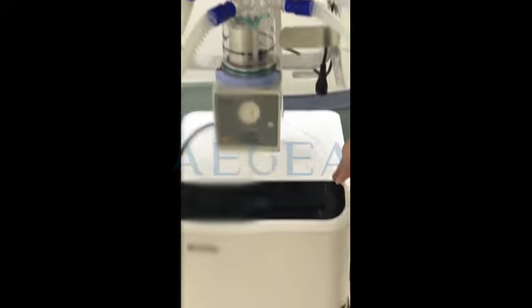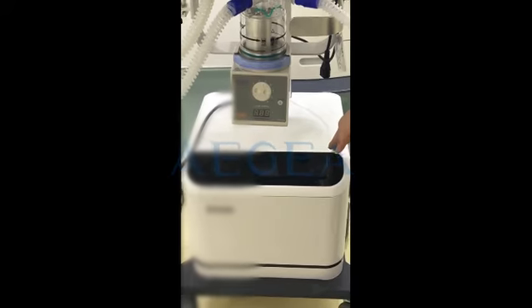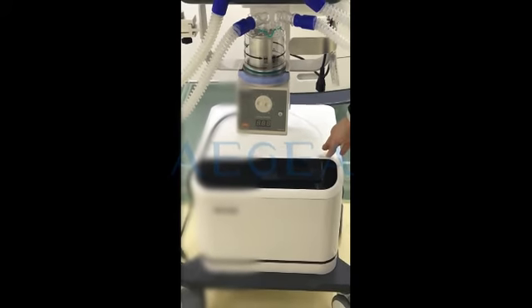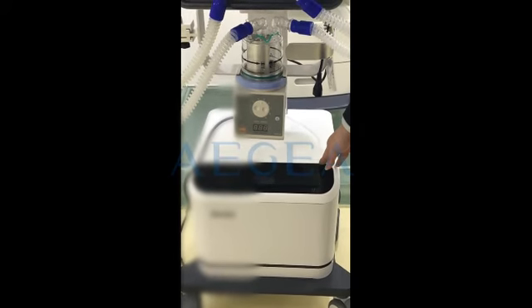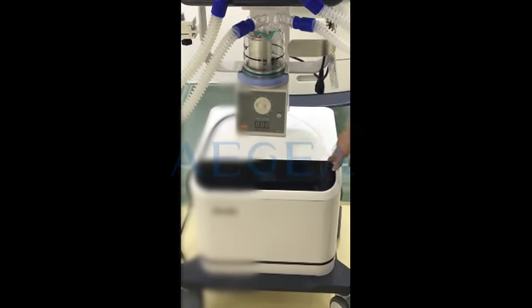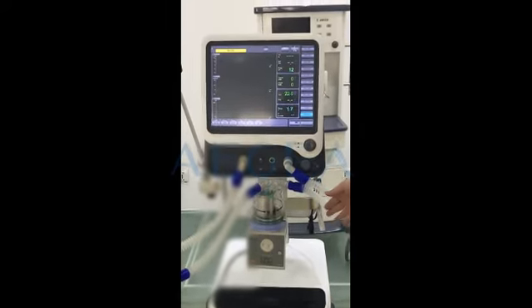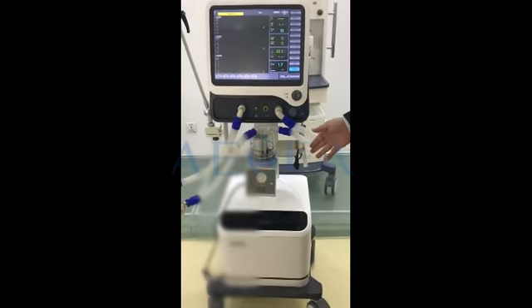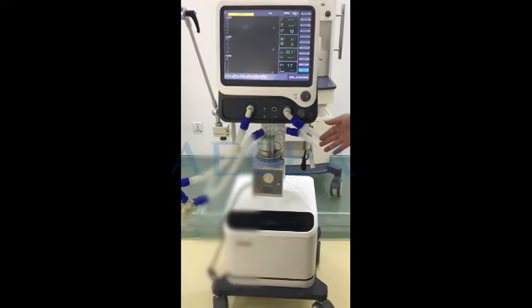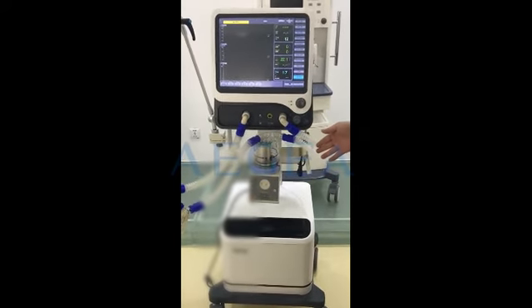This air compressor is a new compressor. You can connect the central gas supply to our air compressor, and then connect the air compressor to the main engine. The air compressor can automatically detect if there is gas coming from the central gas supply.